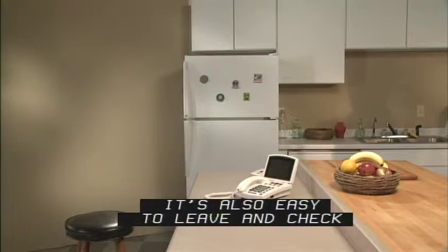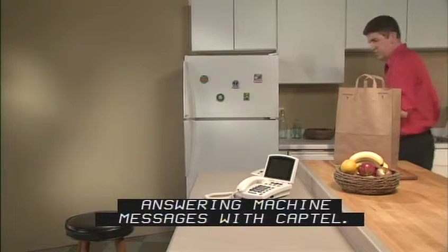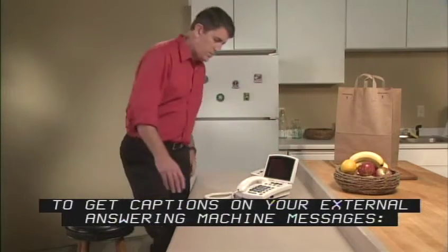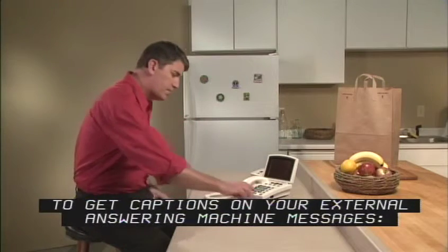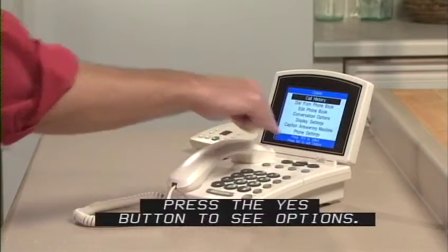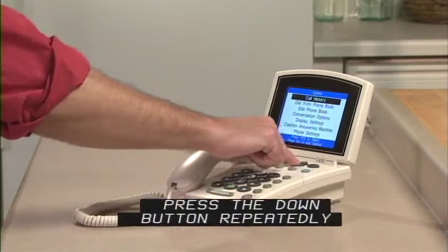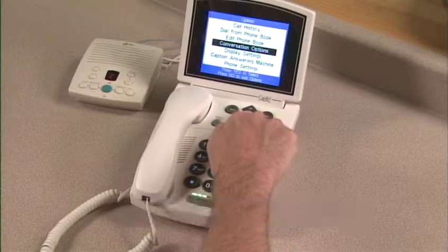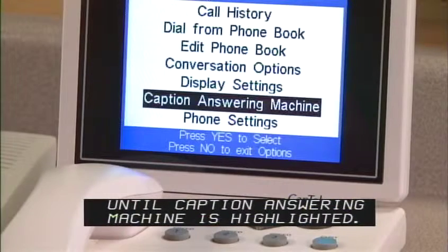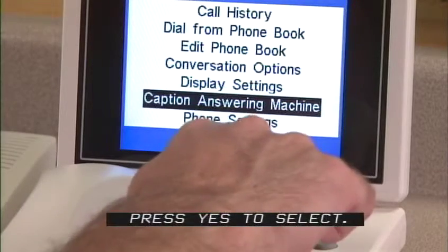It is also easy to leave and check answering machine messages with CapTel. To get captions on your external answering machine messages, with the handset hung up, press the Yes button to see options. Press the Down button repeatedly until Caption Answering Machine is highlighted, then press Yes to select.